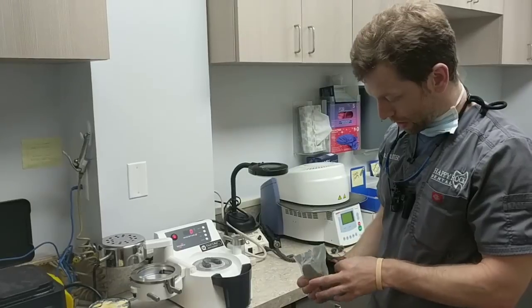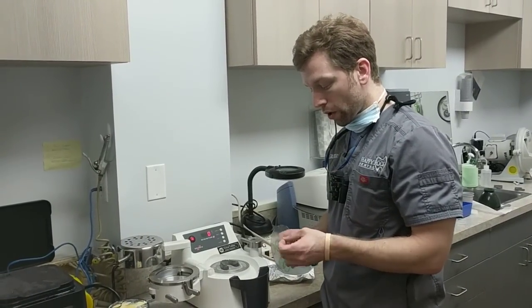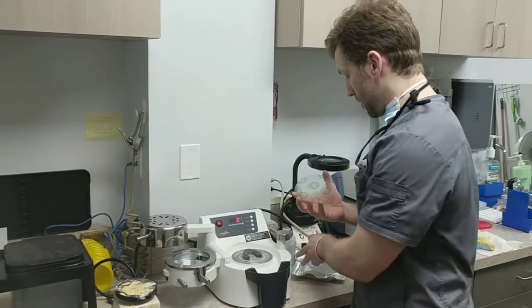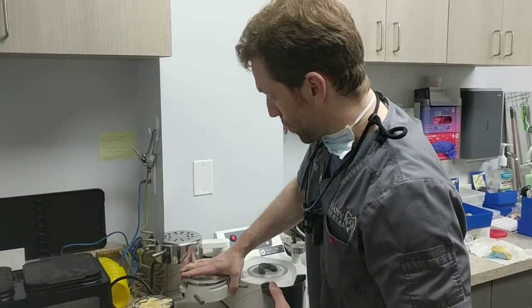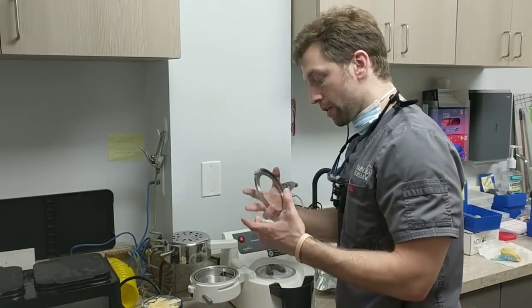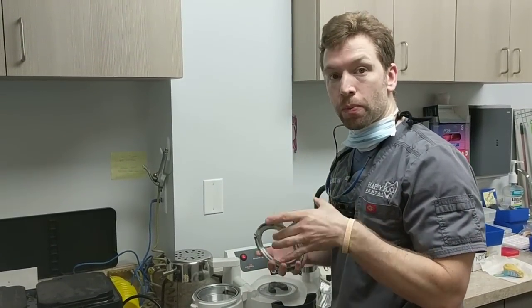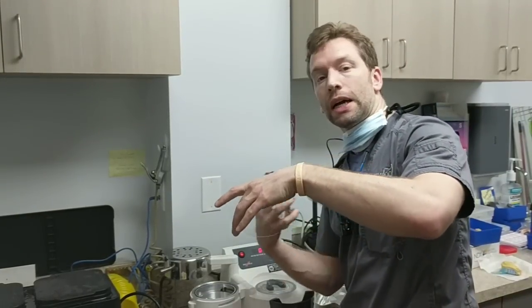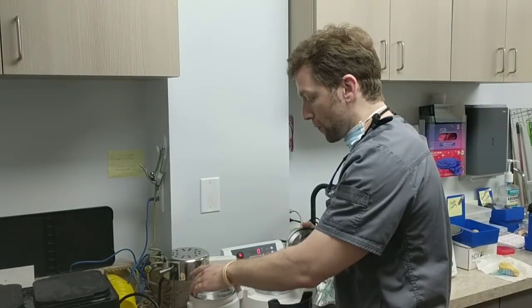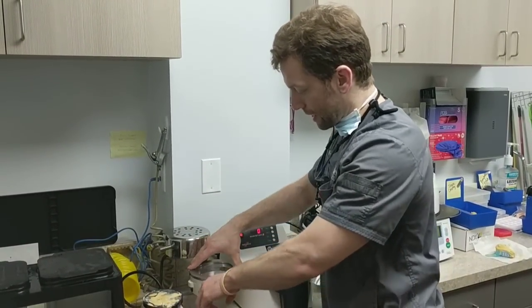This right here is an Essex Ace 040. We're going to go ahead and get this set on here. They're round, so make sure you order round. I actually have my old supply of square ones that I had for the suck down — I would put one of these down here, draw a line, and just cut. It doesn't have to be perfect, but it sets right in there. Make sure that you lock it down.